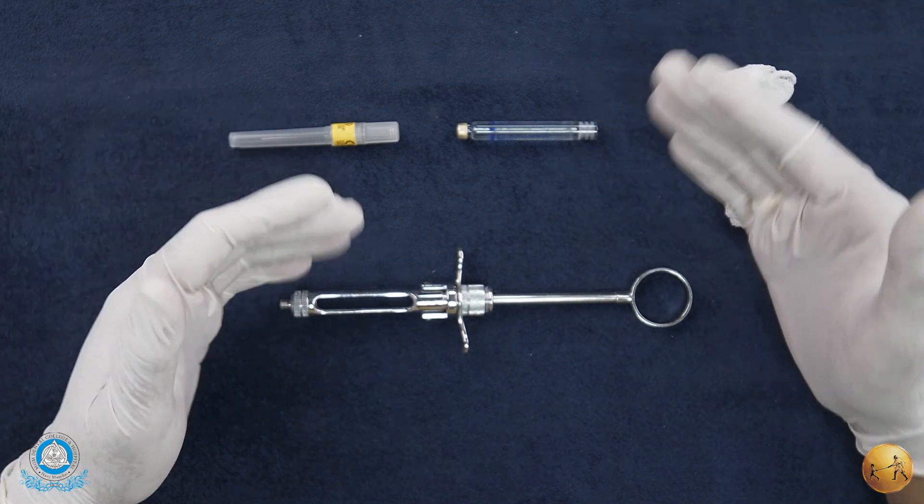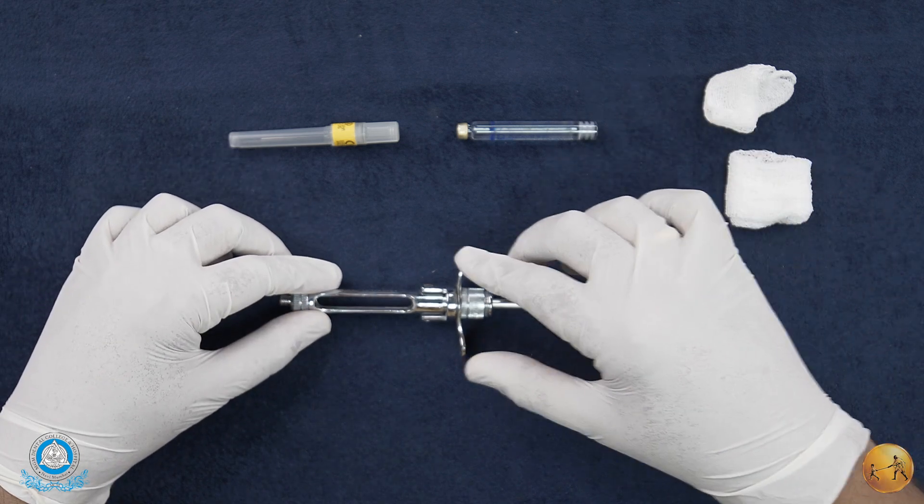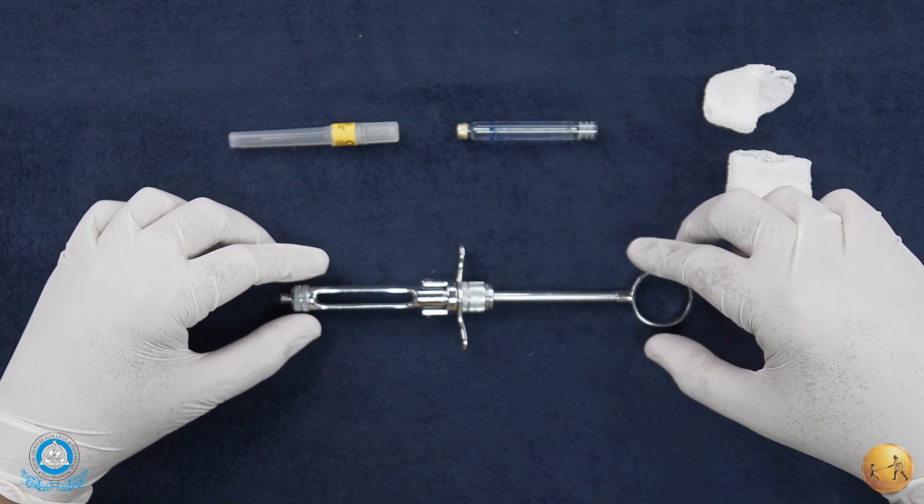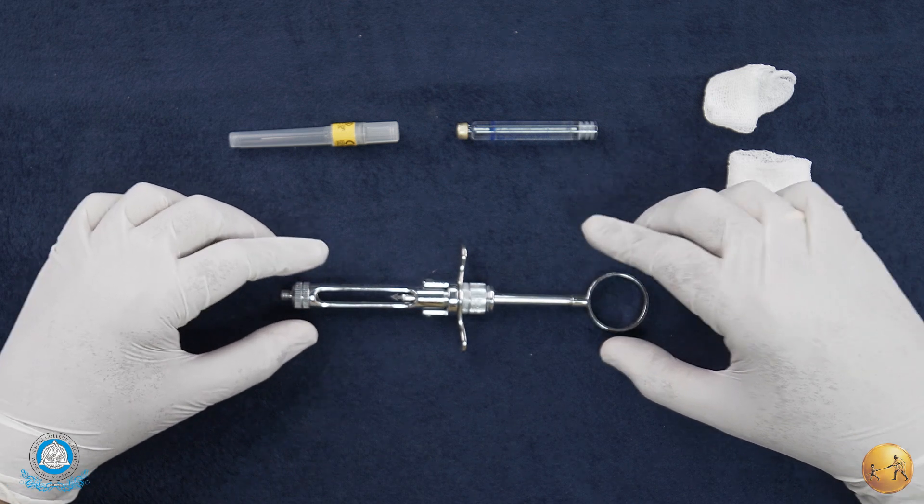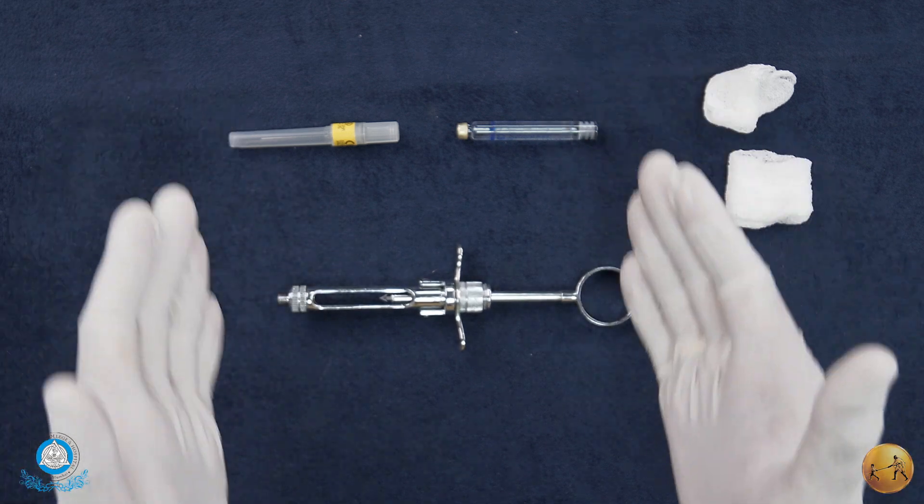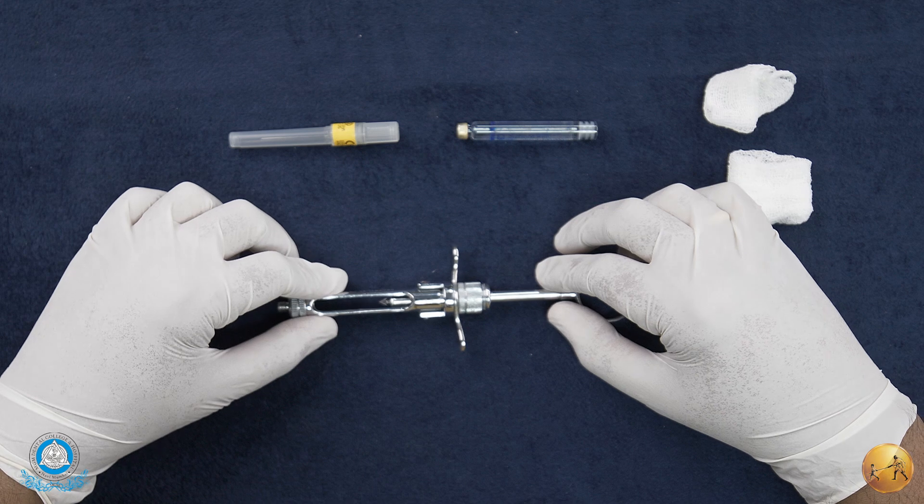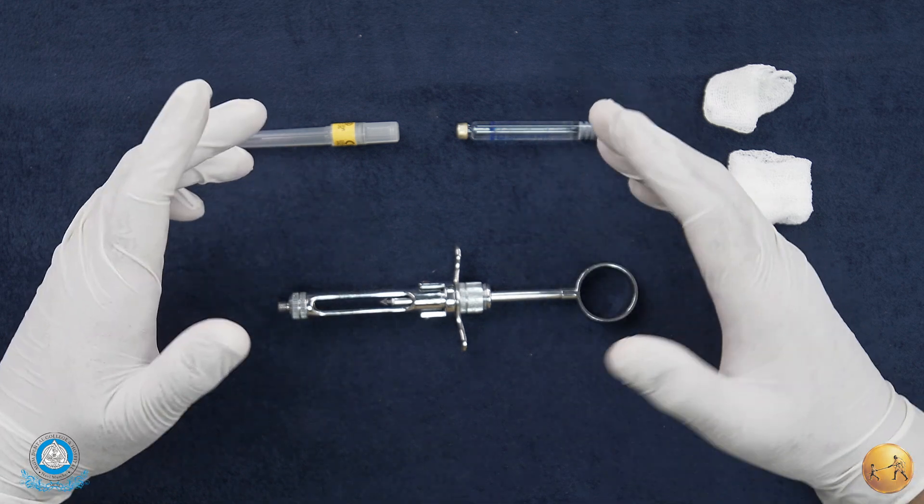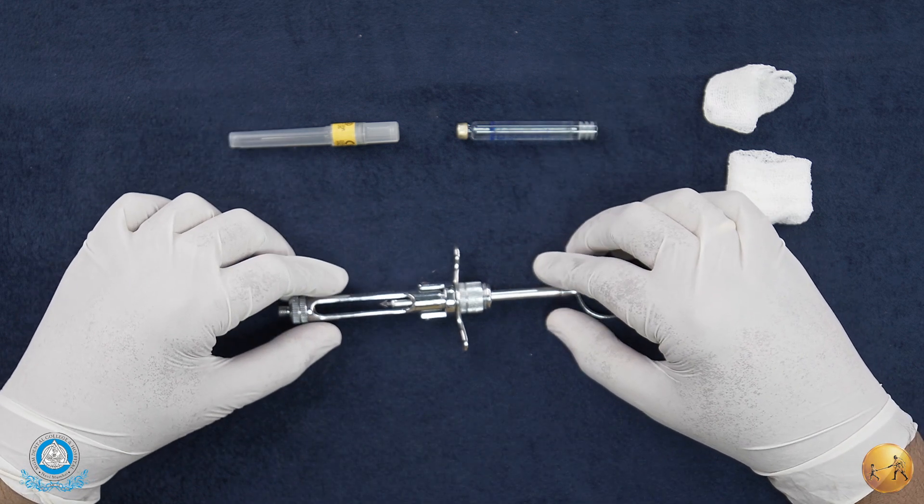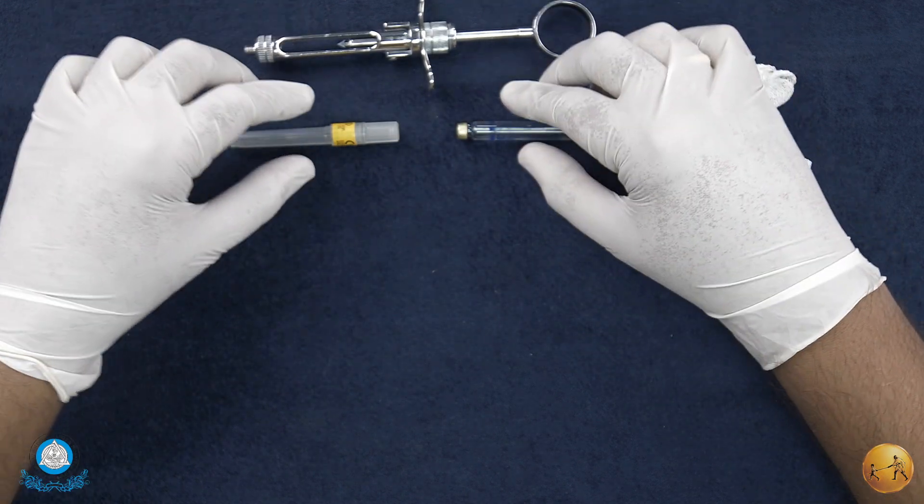It's always better to have your cartridge and syringe matching so that there are no confusions and no leeways for error. It's always recommended that your syringe should be autoclaved and should be considered a critical item.